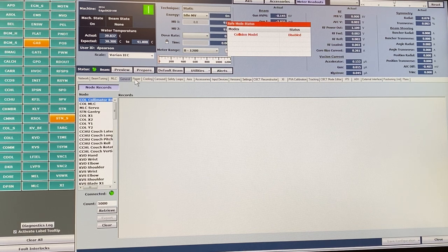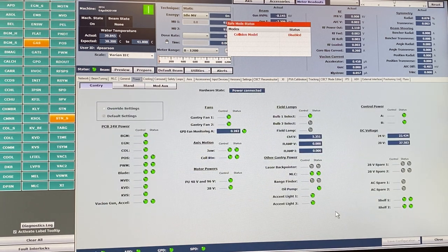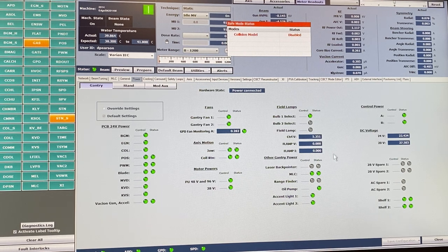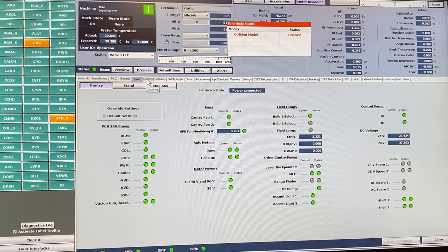The general and power tabs I don't use very often — they're mainly indicator screens showing whether there are any problems. Right now they show green lights on pretty much everything. It looks like our laser back-pointer has been deactivated, which is fine since we don't really use that.